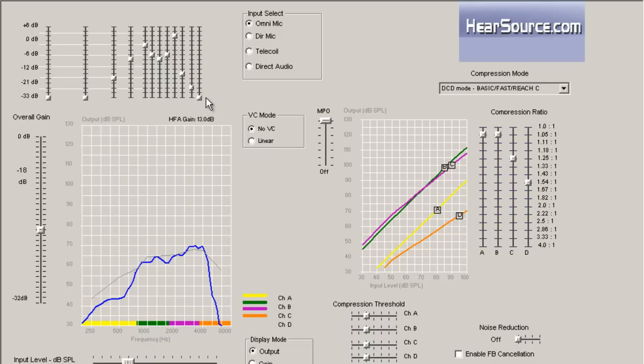And it's very easy, if you turn those up too high, all of a sudden the sounds become very harsh and irritating. And so I actually try to pull those down quite a bit. By doing that, it makes the hearing aids less prone to feedback, because feedback occurs typically in the higher frequencies. And by turning those down, it makes things sound a little more natural and less harsh.